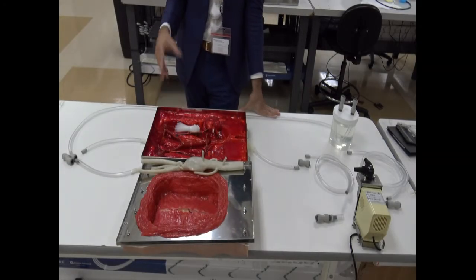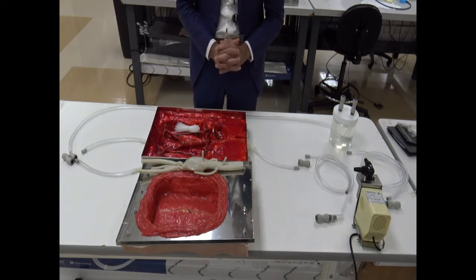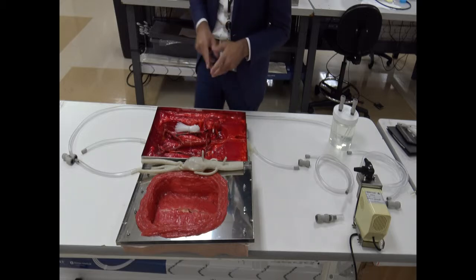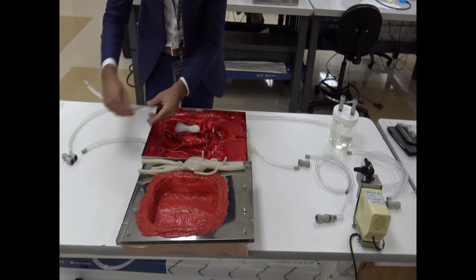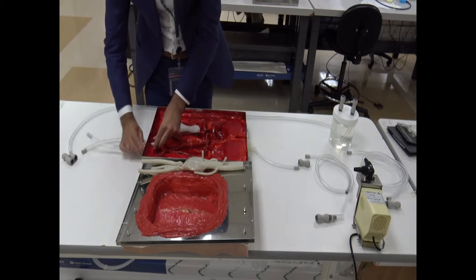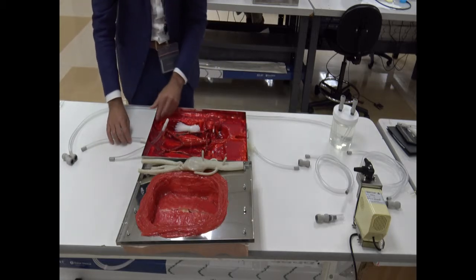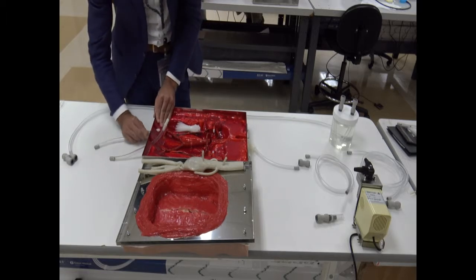So, as you have seen in the picture that has been shown, we have laid out all the different elements that are needed for setting up your simulator. So we are going to start by connecting the different types of models. We're going to start with the femorals. We introduce this component here through the left common iliac. We are going to leave it just in place for connecting later on our silicone infrarenal aneurysm, and we do the same on the right common iliac.